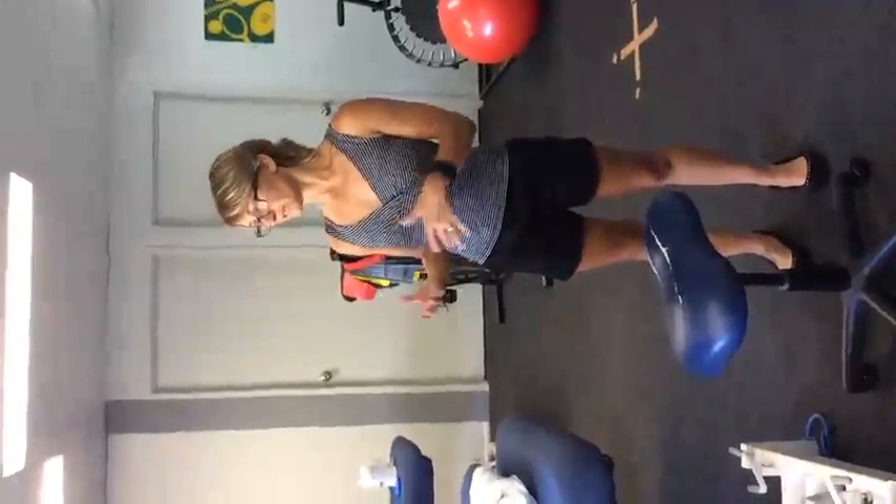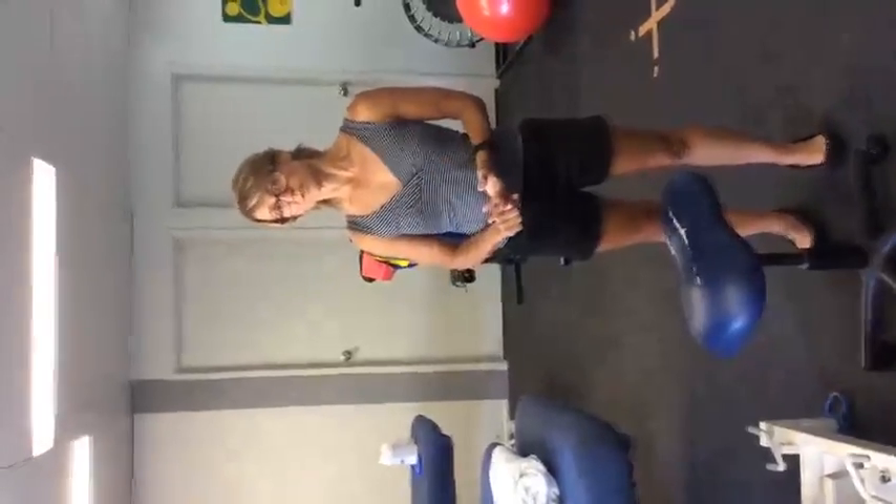I'm explaining the equipment and environment setup that would be used during or after microfracture surgery and debridement surgery, approximately 12 weeks post-op.